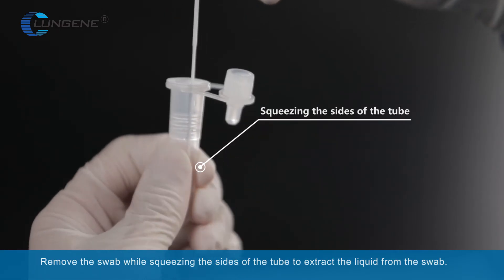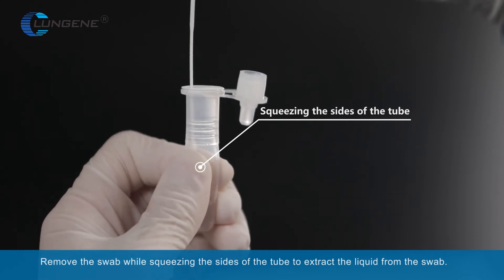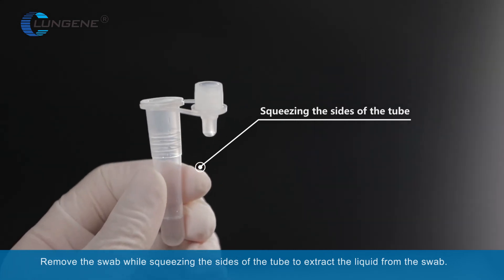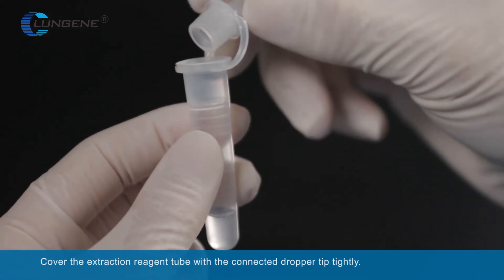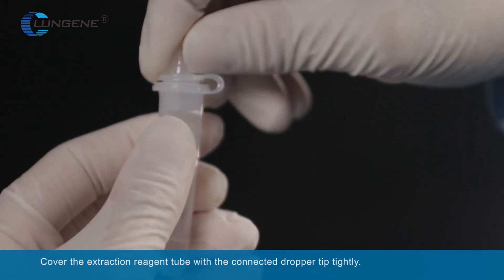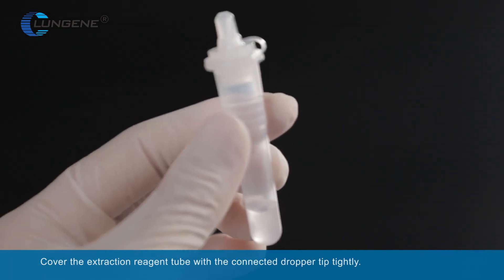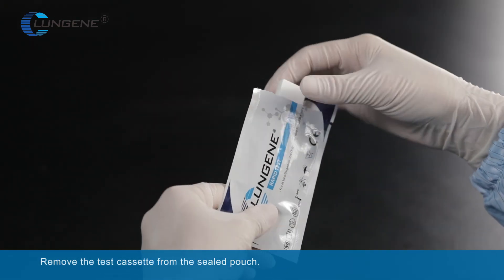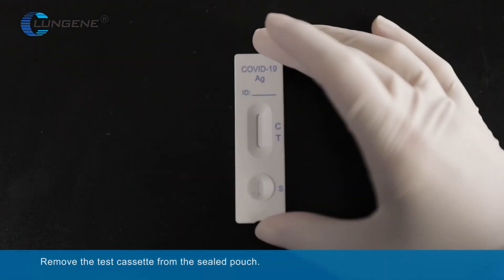Remove the swab while squeezing the sides of the tube to extract the liquid from the swab. Cover the extraction reagent tube with the connected dropper tip tightly. Remove the test cassette from the sealed pouch.